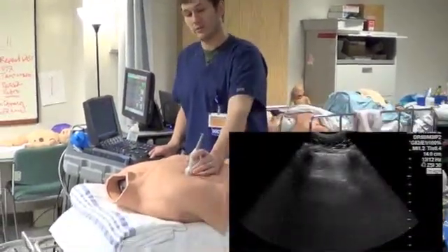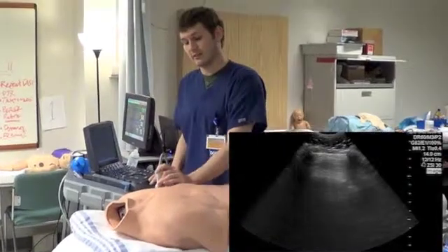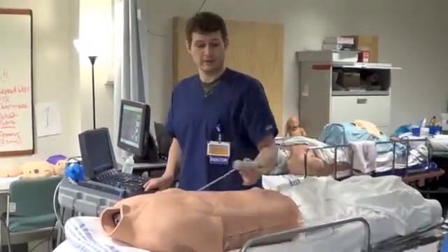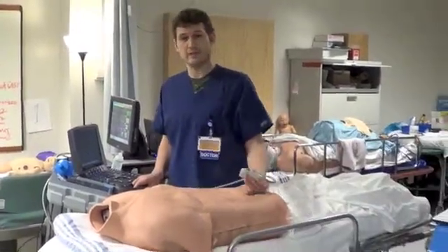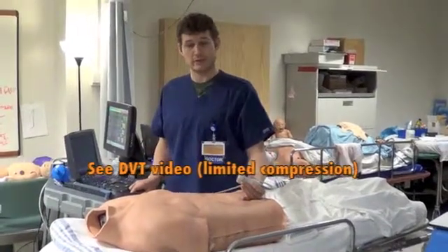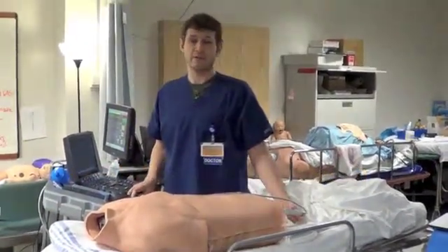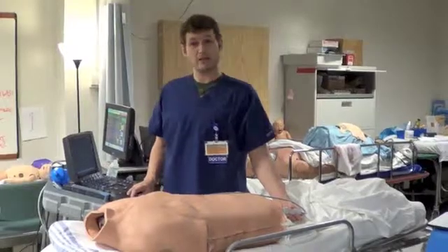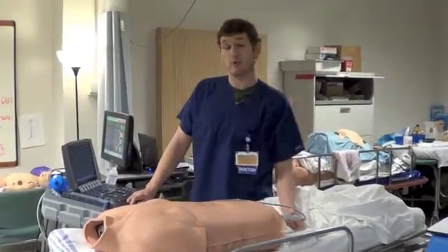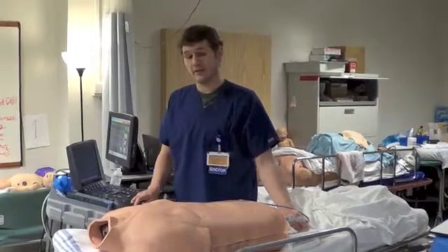If A lines are present bilaterally, we need to proceed to do a DVT study, which has also been described in another part of the page. If the DVT study is positive, your diagnosis is essentially a pulmonary embolism and you may stop the exam at that point.